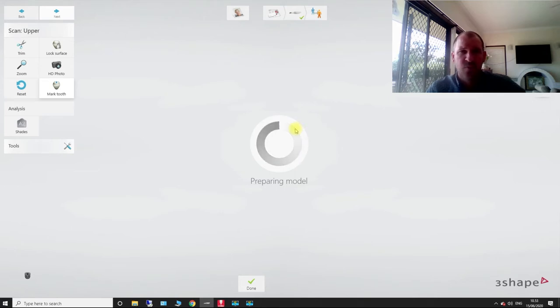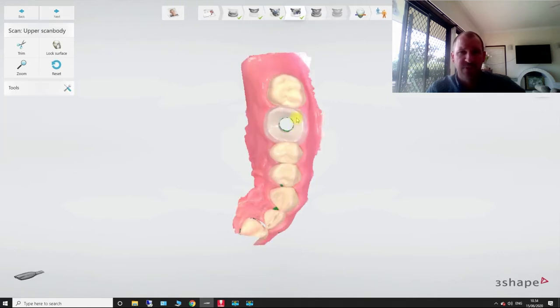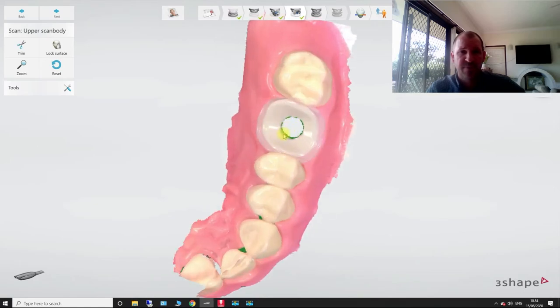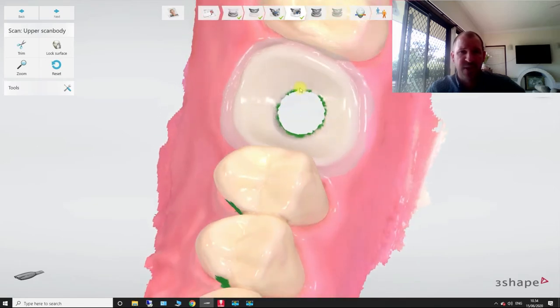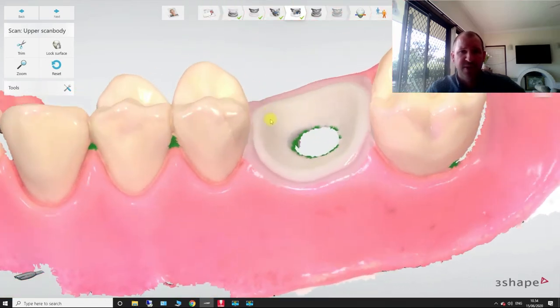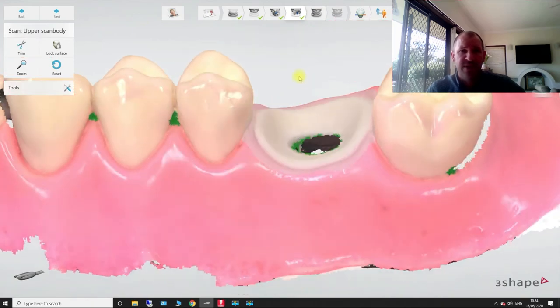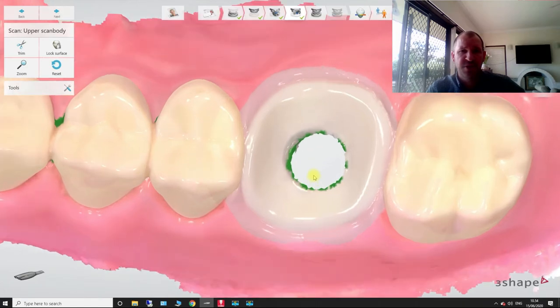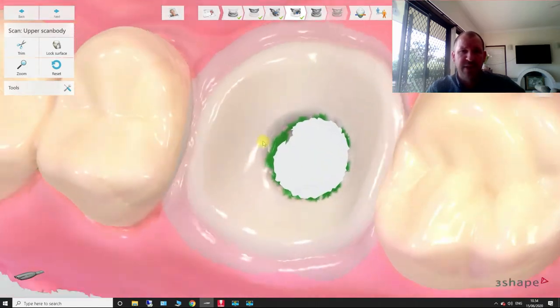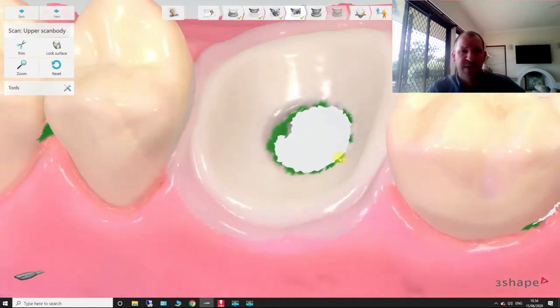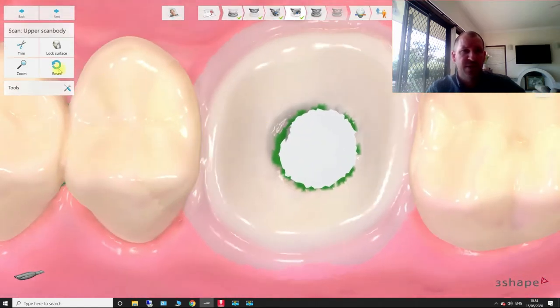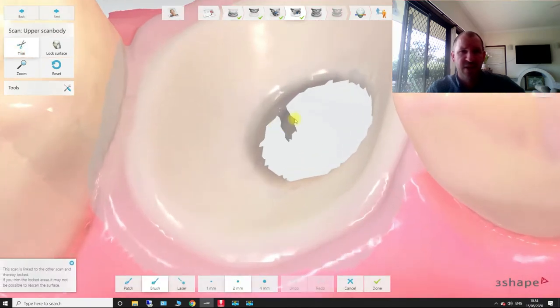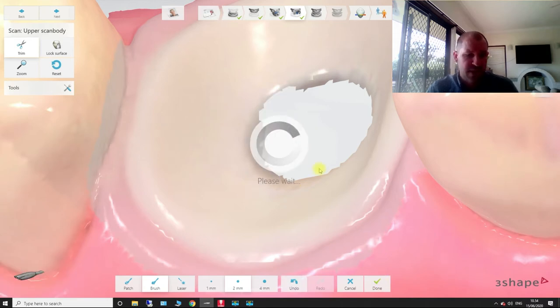Now, I don't want there to be a large, big cutout hole like that because I'm going to be losing all my soft tissue. But can you see how the program cuts away that small little area for our scan body? So what that's doing is basically that's marking this whole area around here as a high definition, but it's just deleting this middle section here for our scan body. So if you really wanted to, let's say I don't need this part here for the scan body. So you can trim that. I'll hit done.